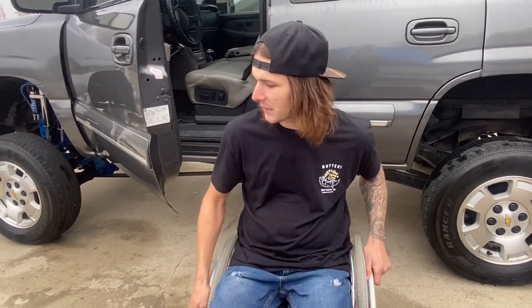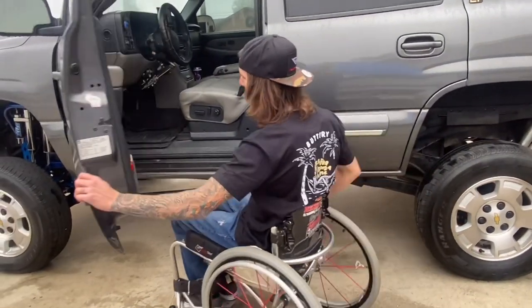With so many people interested in how I get into my lifted Tahoe, I thought I'd make a little video and show you exactly how I do it. So let's jump right in. I used to have a 4-inch lift on the Tahoe, now I got a 10, so it's going to be a little bit bigger but we're still going to make it work.